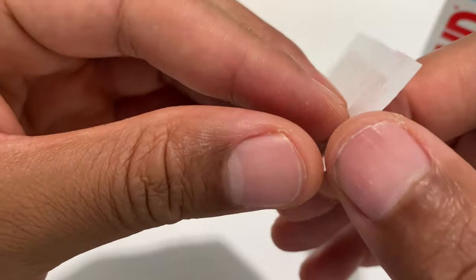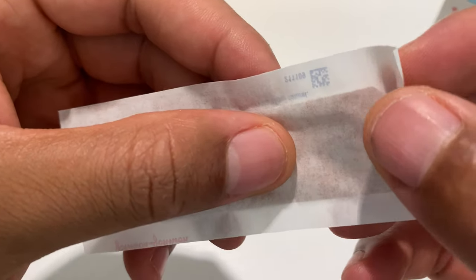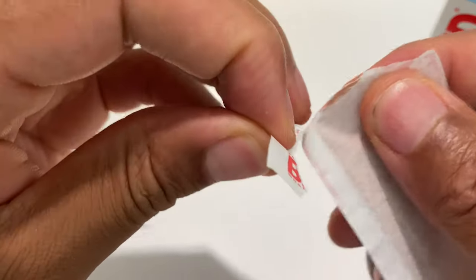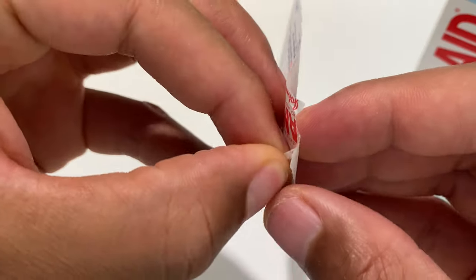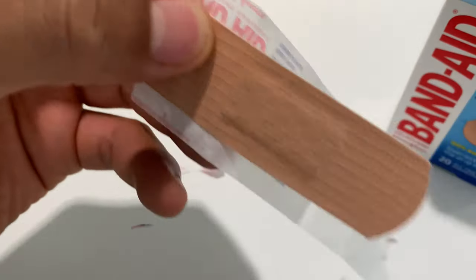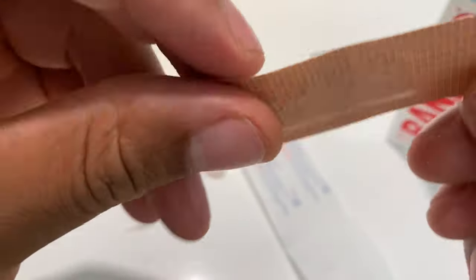I'm going to find the opening — it's a little tough finding it. I thought it'd be a bit easier to open, but it's a little tough. So I'm going to use a method called the tear method, where you tear an end of it. I'll open it up right here, peel this back, and inside is the bandage — nice looking.